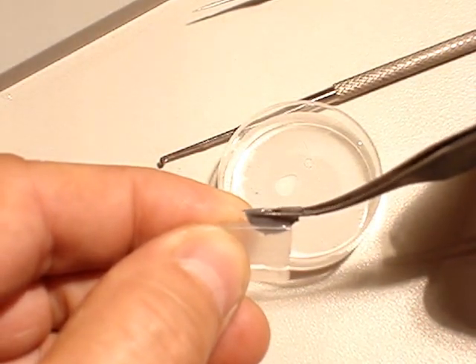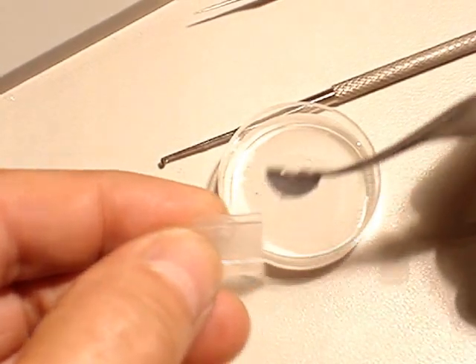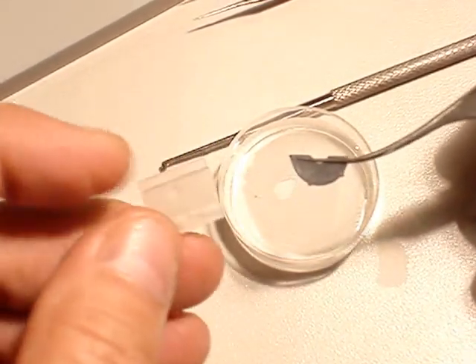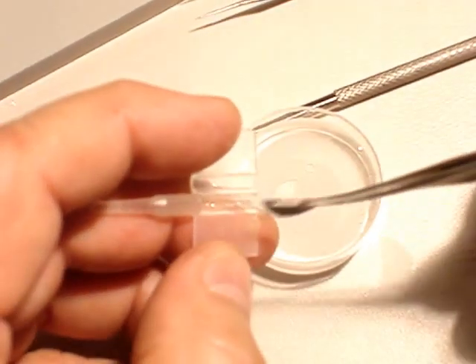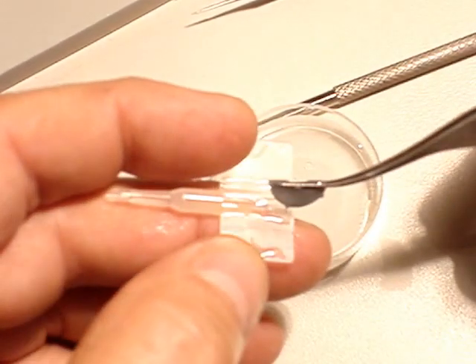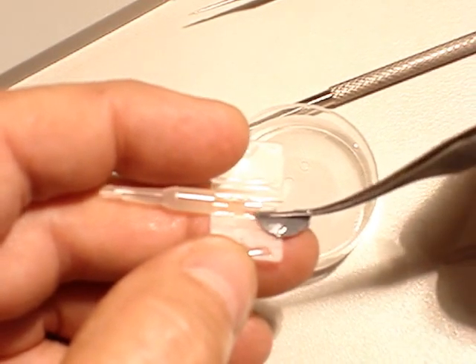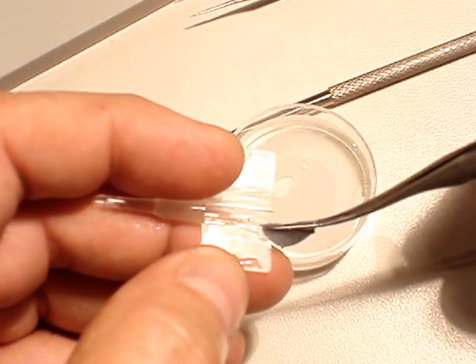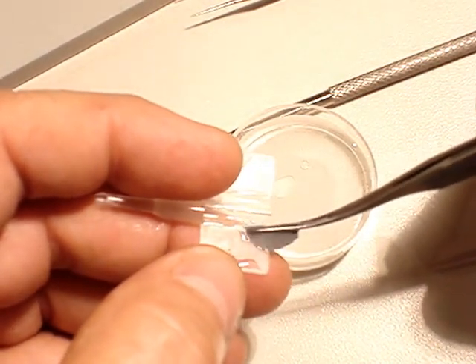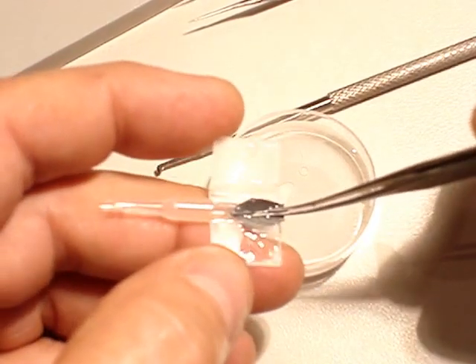Then we pick the implant very much at the end. Then we open the cassette. In the first corner, make sure the two sides of the implant are going to be split. You see how it was split?